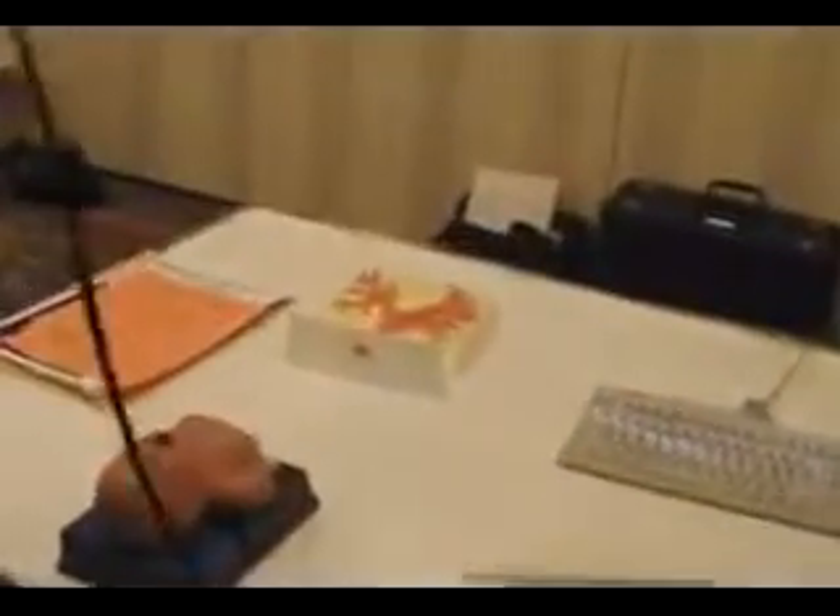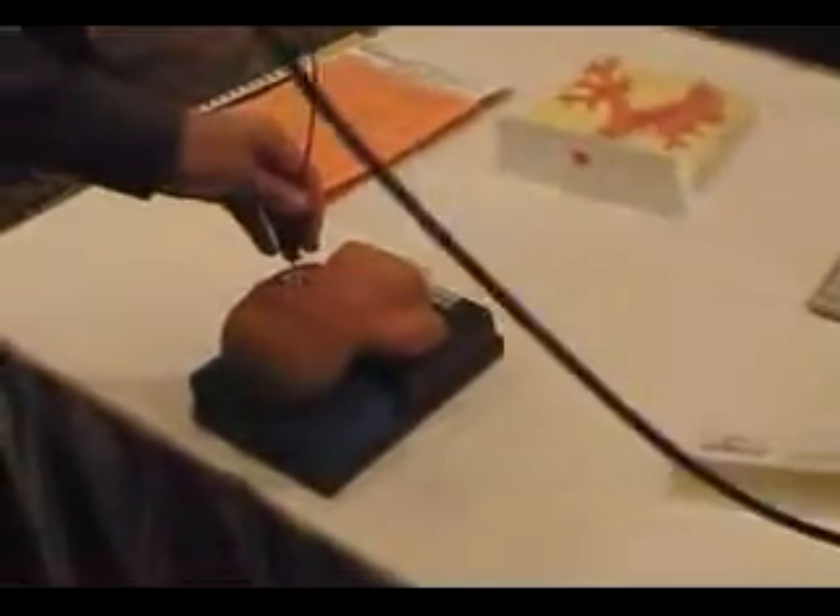What kind of video is this? What do you call this thing? What's that? What do you call it? Intubation. Intubation scope. Difficult airway scope.